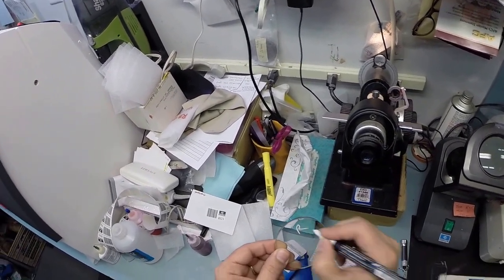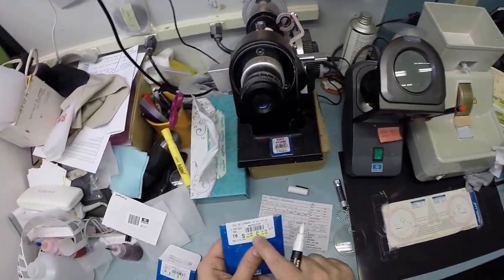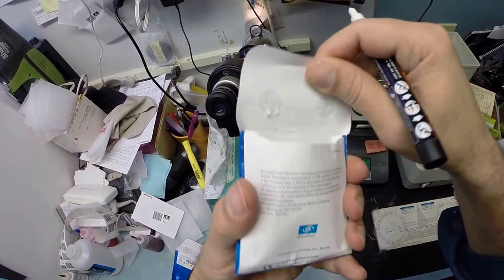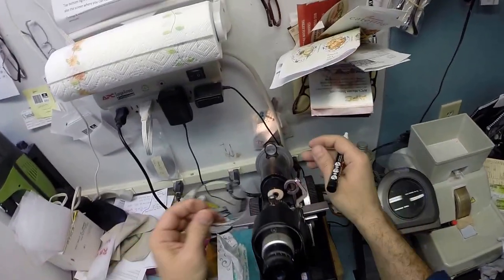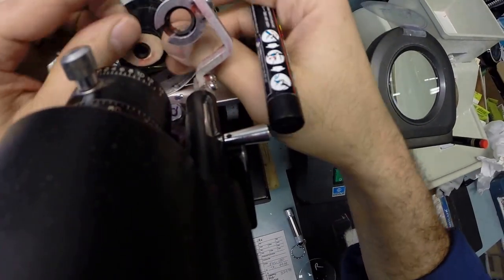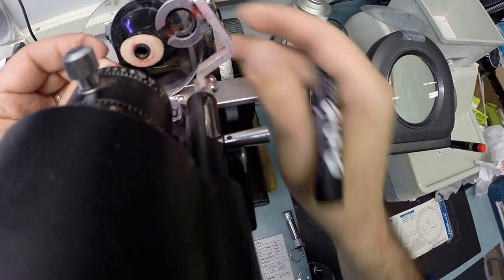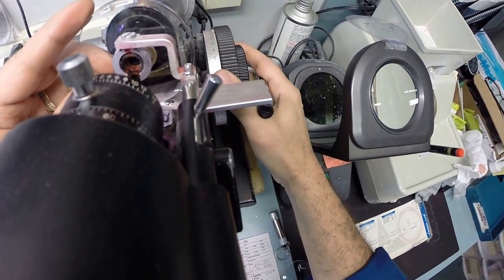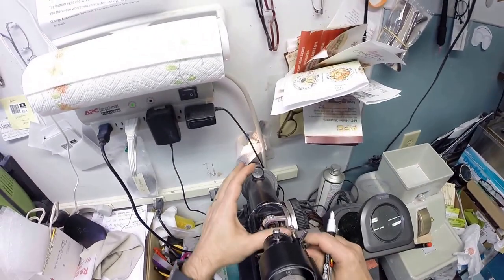Let's do the same thing now for the left lens: minus 2.50 minus 0.50 at 100. Take that out of the protective packing, put the power drum on minus 2.50, rotate your lens till the sphere power comes in clearly, close down that clamp, and put three dots on your lenses.